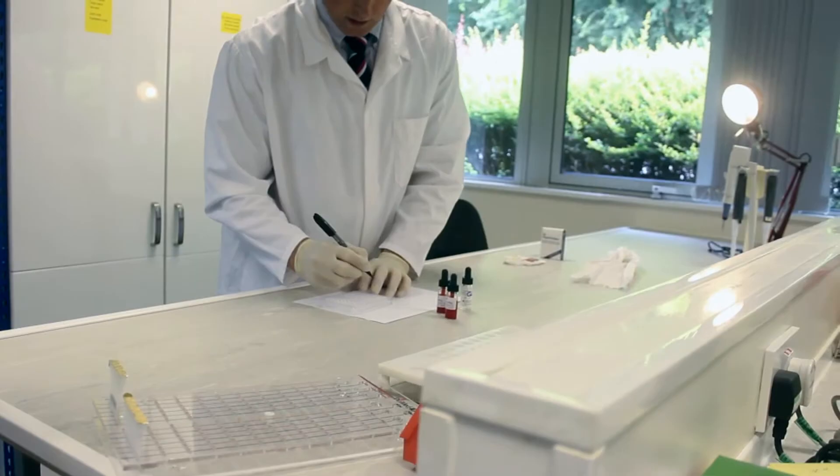To demonstrate the microtiter technique, we will be using one positive and one negative sample.